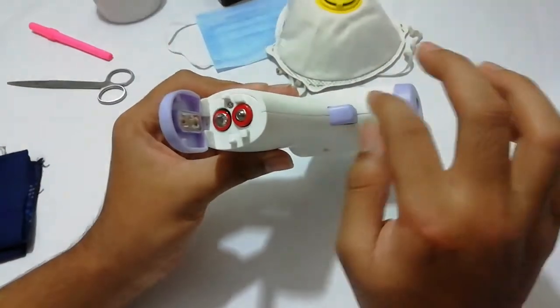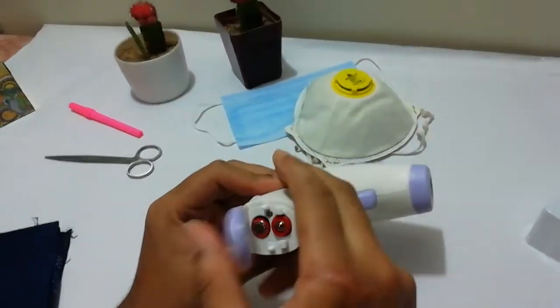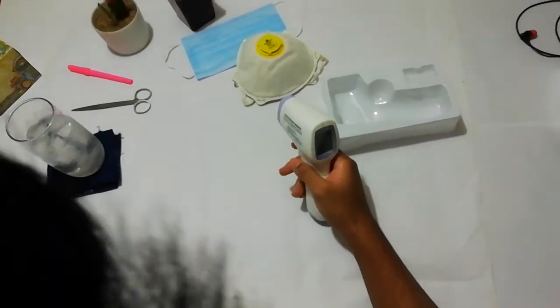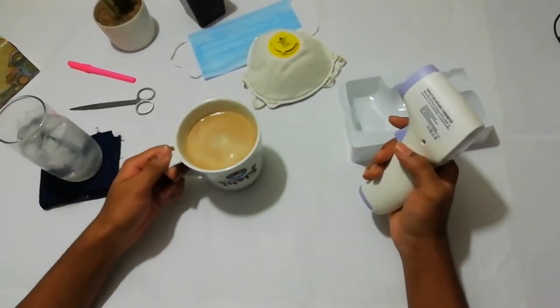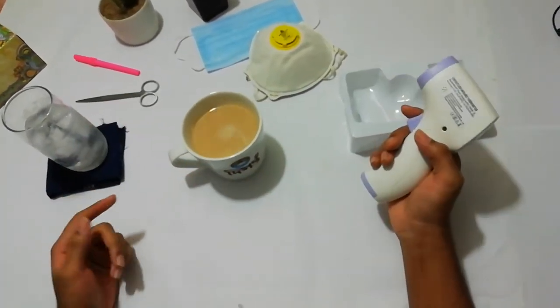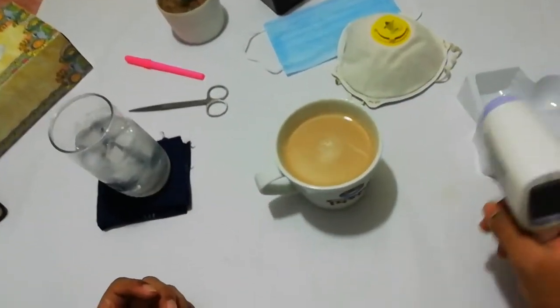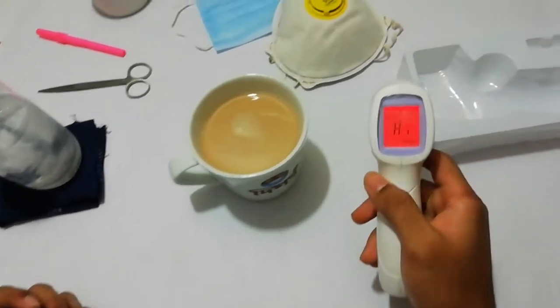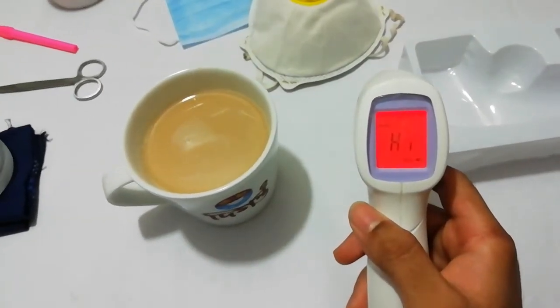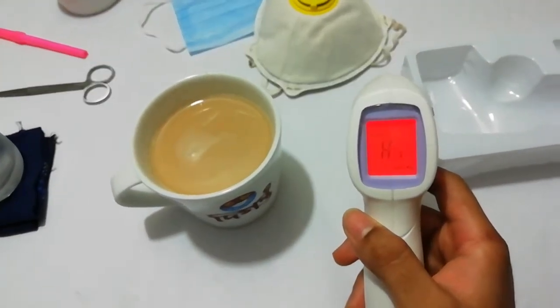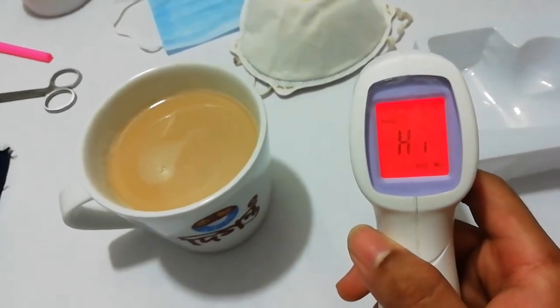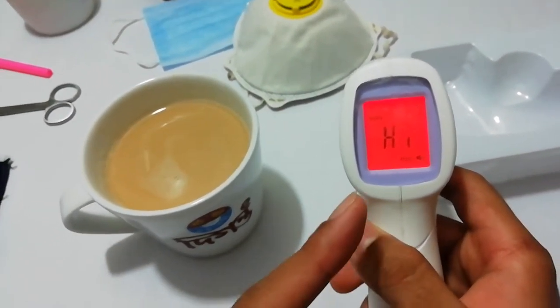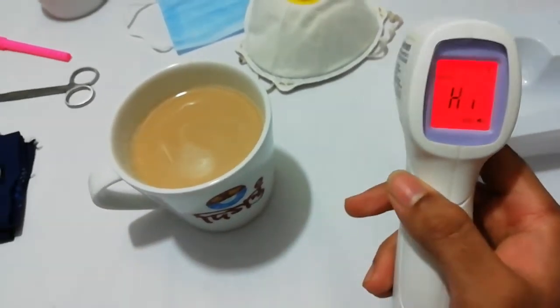It's now open. And on the other side, we have some controllers that we can make it Fahrenheit to Celsius. Now, it's running on Celsius mode. That's why I can see here C. That means it's running on Celsius. Let's talk about its working system. Here I can see two mini pencil batteries that supply the power to the main thermometer.